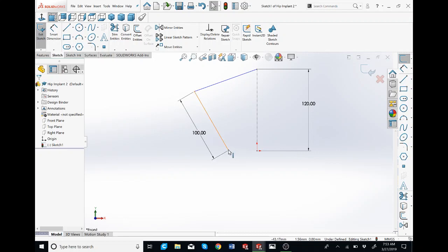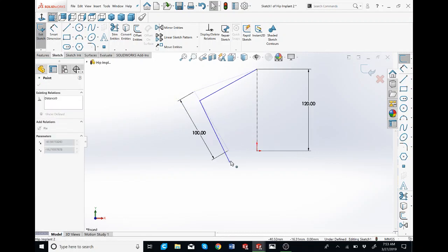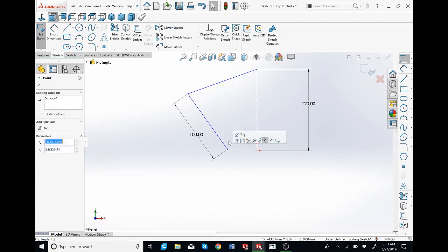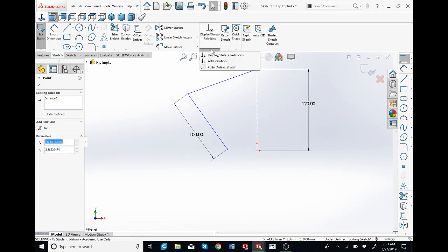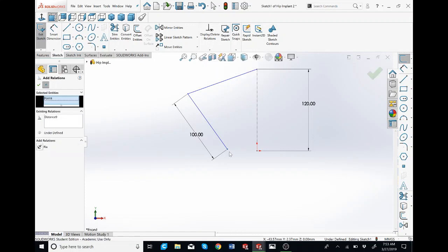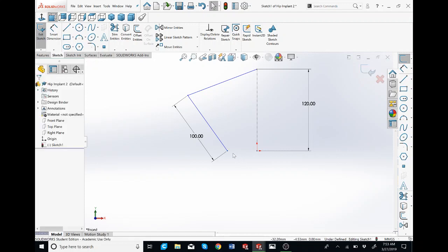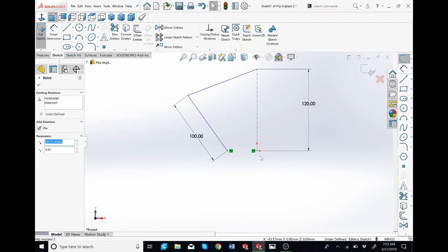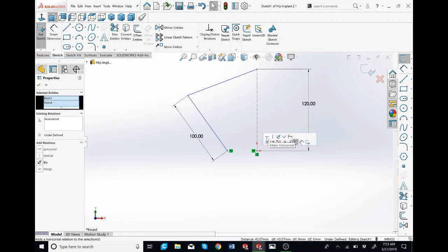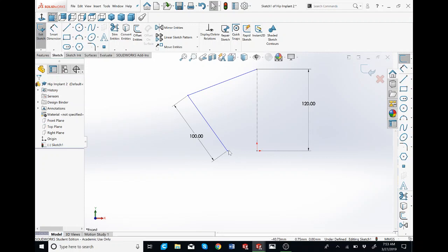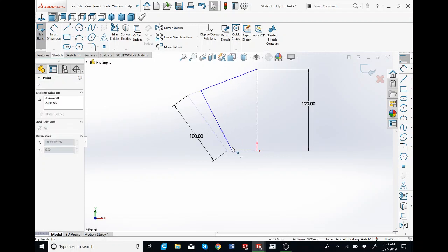You see, if I drag this blue line, it will go anywhere. So what we're going to do is make a horizontal relation. You can go to display, delete relations, click on the down arrow, add relation. Because my point was highlighted, it's selected in the box already. An easier way to do this is to click on this point, hold control, click on the origin point, let go, and this will pop up in the box. So now if we try to move this point, you'll see that it can't go up or down.